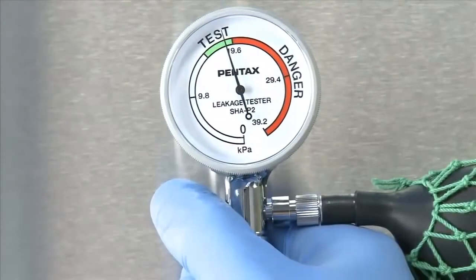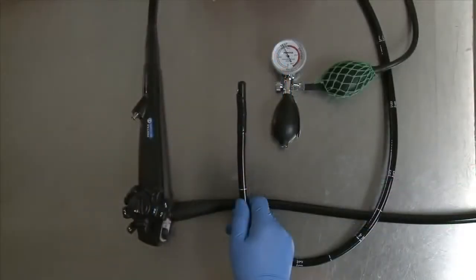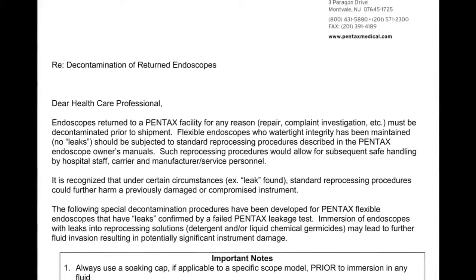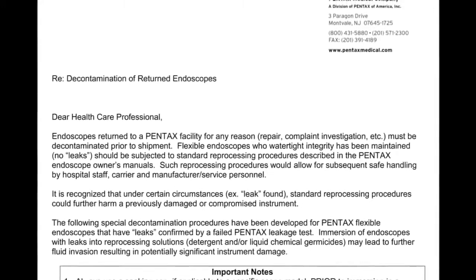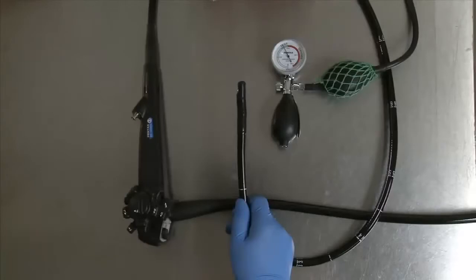Observe the leakage tester gauge. If the indicator needle drops rapidly, a leak may be present. Stop and refer to the Pentax decontamination procedures. Do not proceed with the wet leak test, cleaning or disinfection until you know that it is safe to do so.